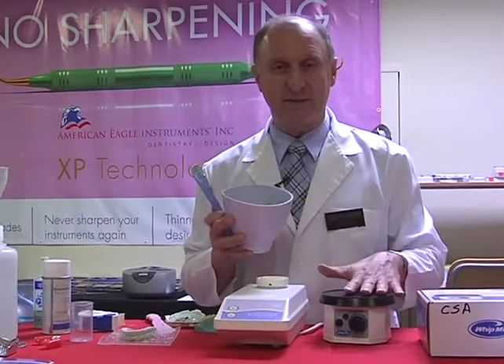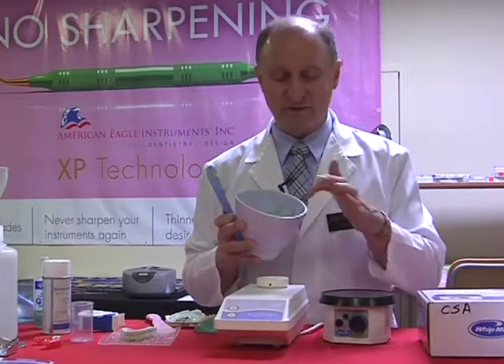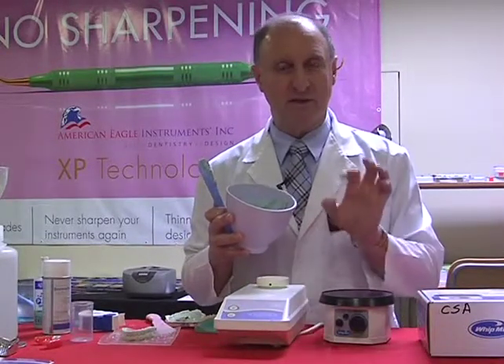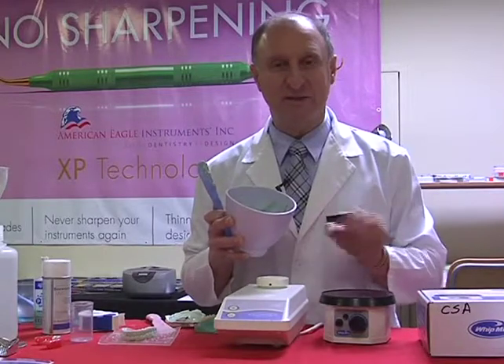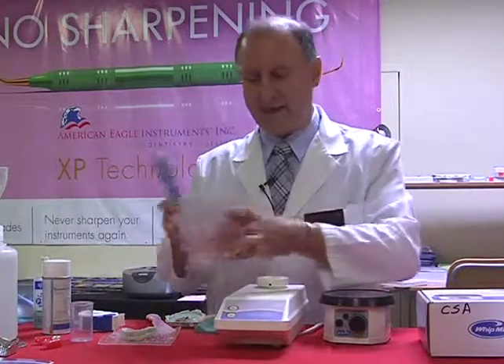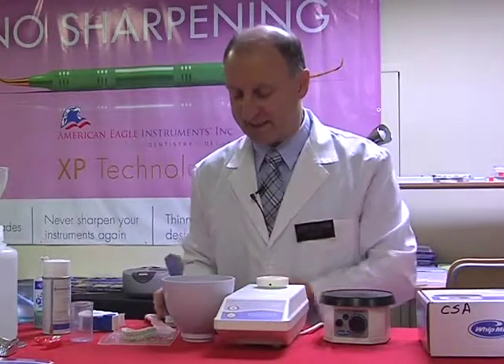The vibrator that we're using is just a method of transferring the stone into the impression as quickly as possible. So the longer we spend vibrating the stone in, plaster in, we're going to produce more bubbles. So again, eliminate that time. Try to cut it down.